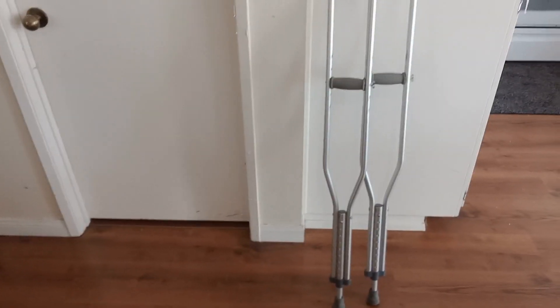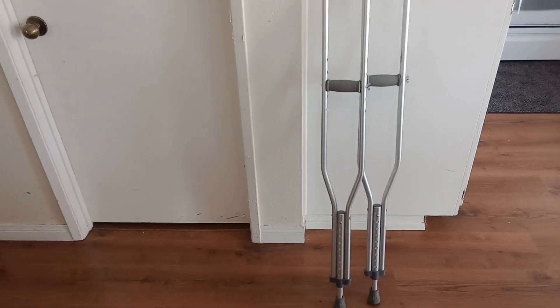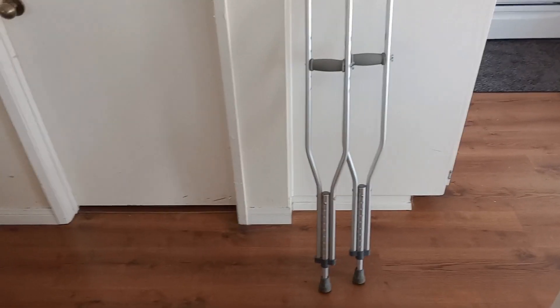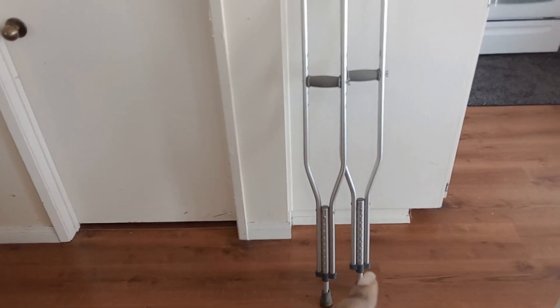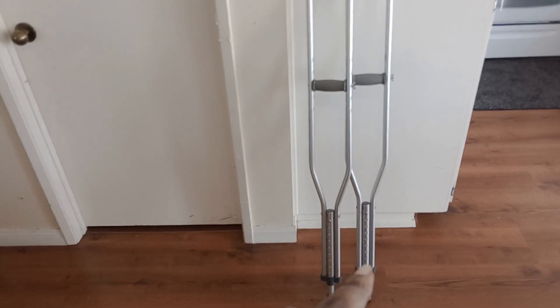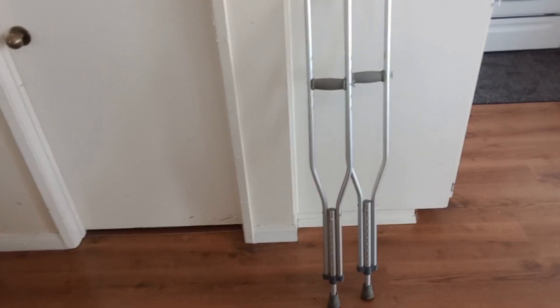Anyhow, I have been on crutches before. I don't know if everybody has once in their life, but crutches are pretty simple. At the very bottom of both legs, you're able to adjust them — whether you're shorter or taller, you can make it fit comfortably to your height.